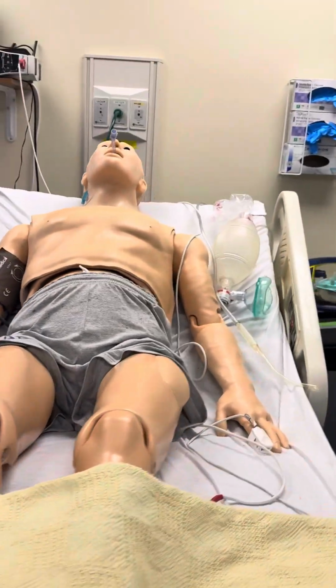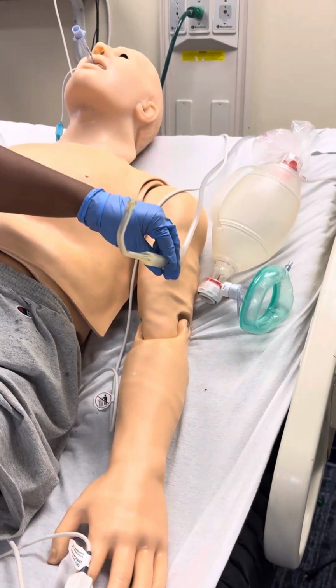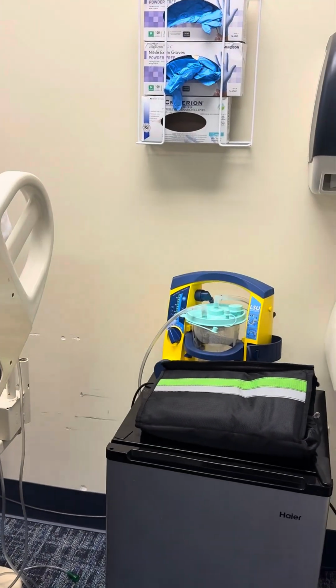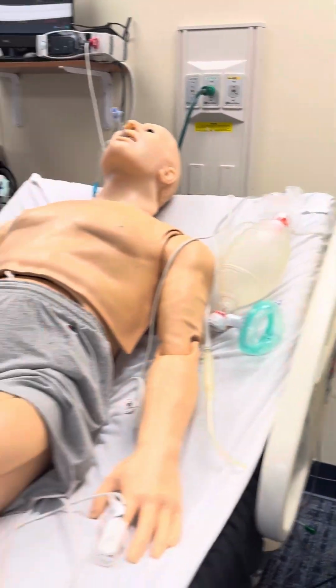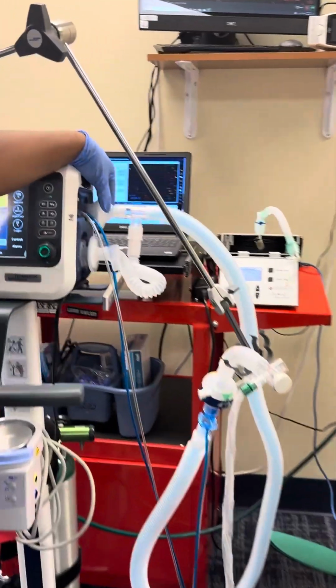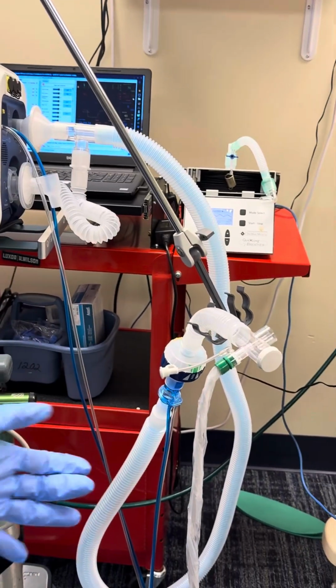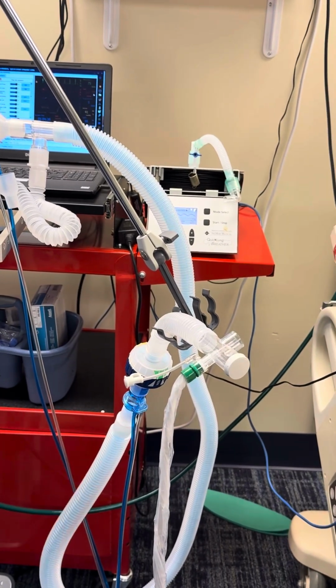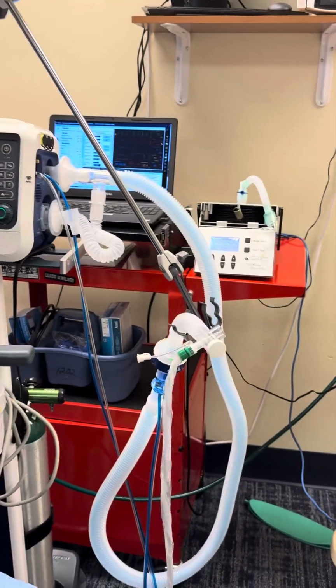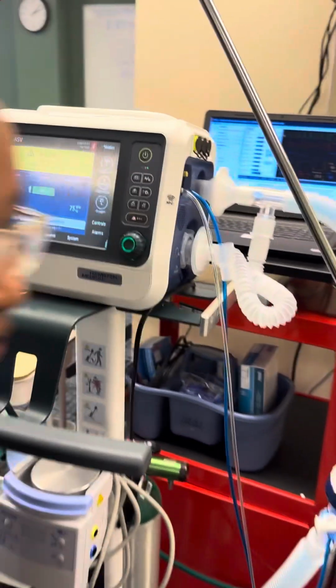I'm going to make sure I have my ambu bag, my suction with my Yankauer, my emergency airway, my stethoscope, my HME, as I stated, my bacterial filters, flow sensor, and my suction. And now I'm going to put in my settings. Let me get my patient's chart.